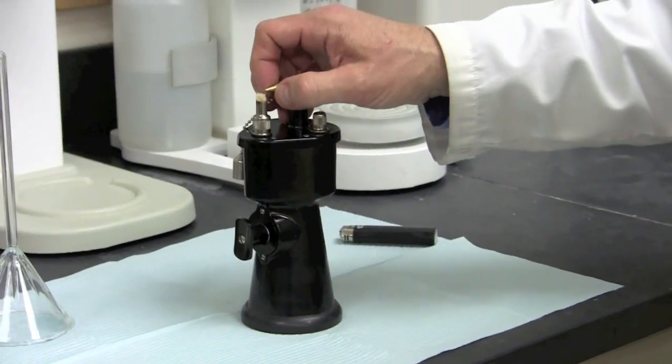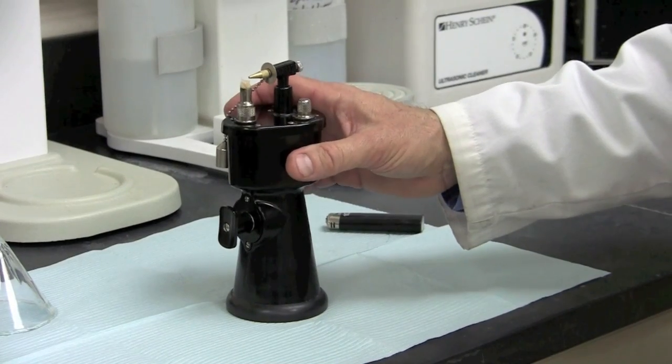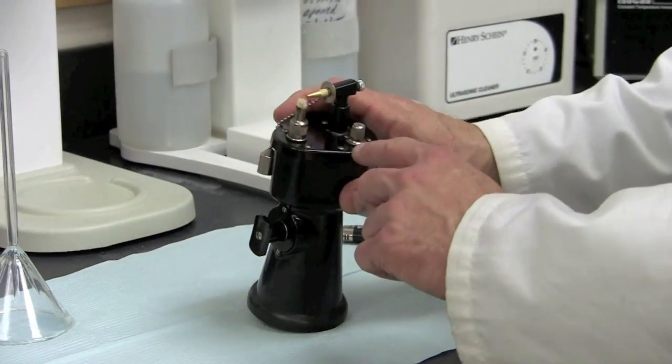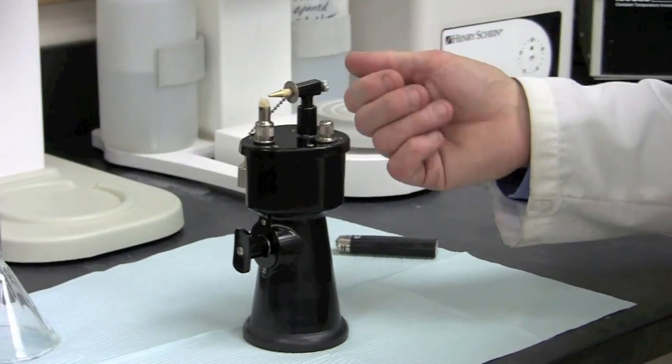We want to check the tip, the nozzle — make sure it's not clogged with any wax for safe operation. If the filler cap is clogged with wax, it can either be boiled out in a boil-out tank or it can actually be steamed.